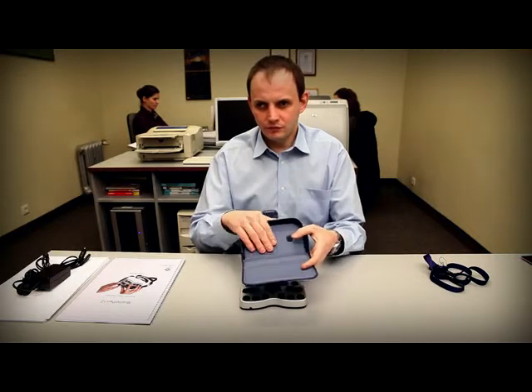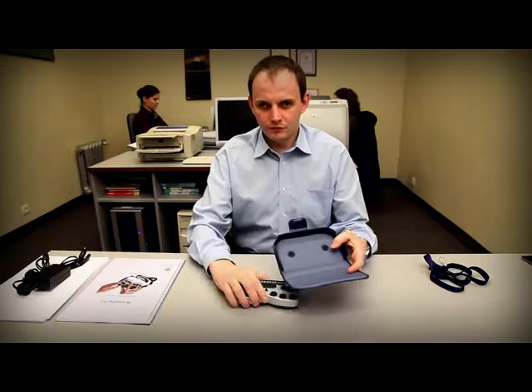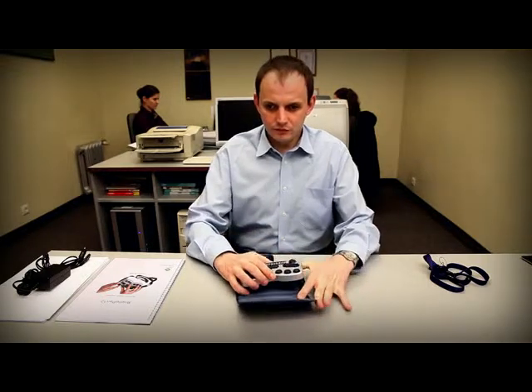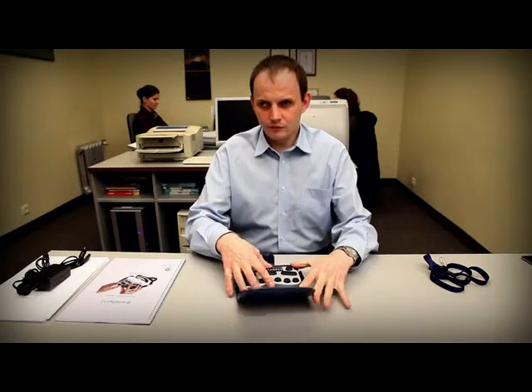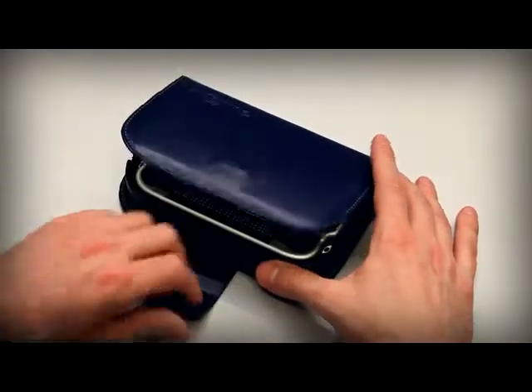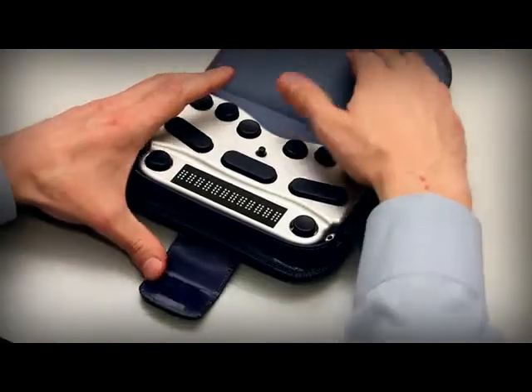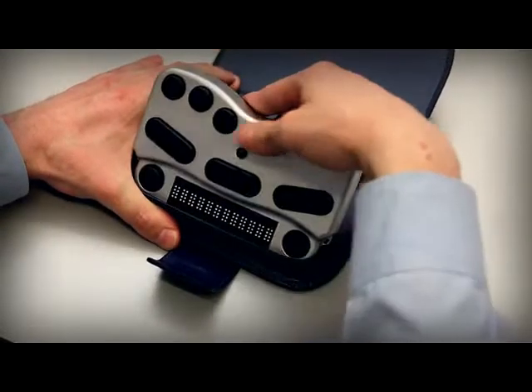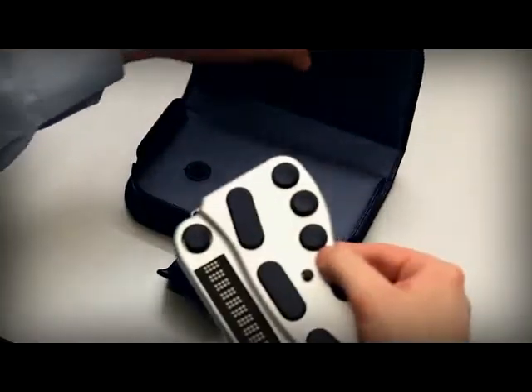There's also a pouch to protect the Braille Pen 12 in transit or when it's not in use. The pouch is made of high quality leather and it opens to give access to the keys and display when they're needed. The Braille Pen 12 attaches to the pouch with Velcro.